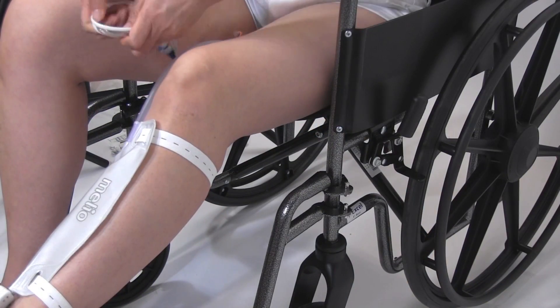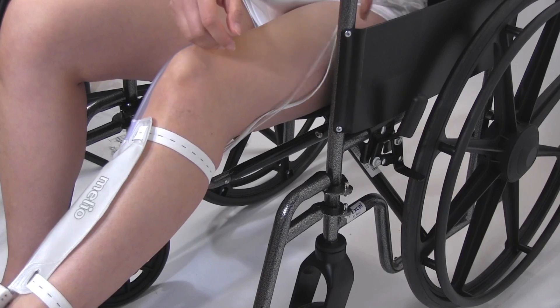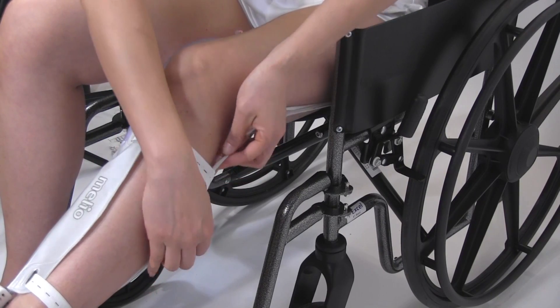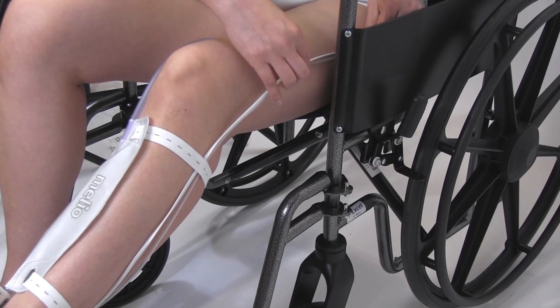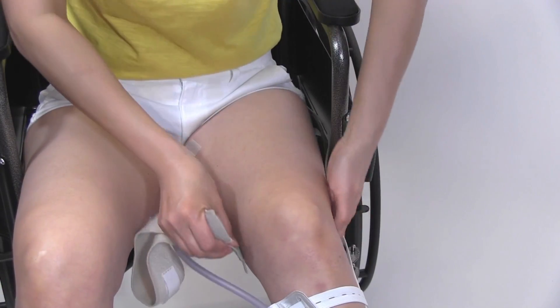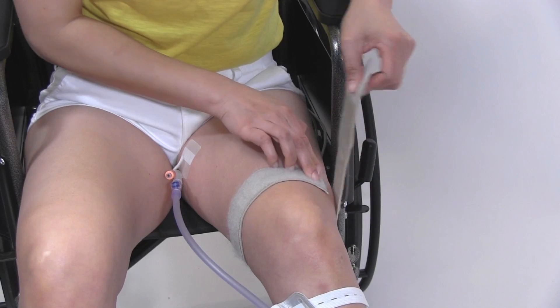Position the discharge tube and the controller power cable on the opposite side of the thigh. Use the thigh strap to secure the inlet tube on the same side of your thigh as the leg bag.